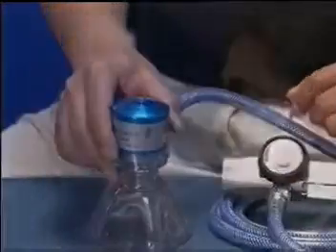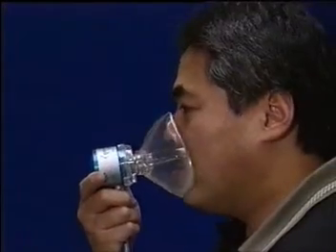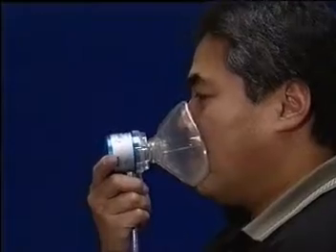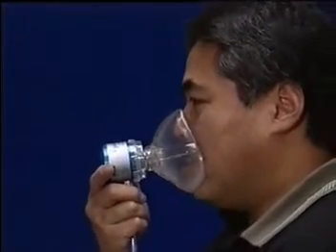The Equinox II demand valve will deliver analgesic gas to the patient at the rate and volume the patient demands, up to a maximum flow rate of 160 liters per minute.